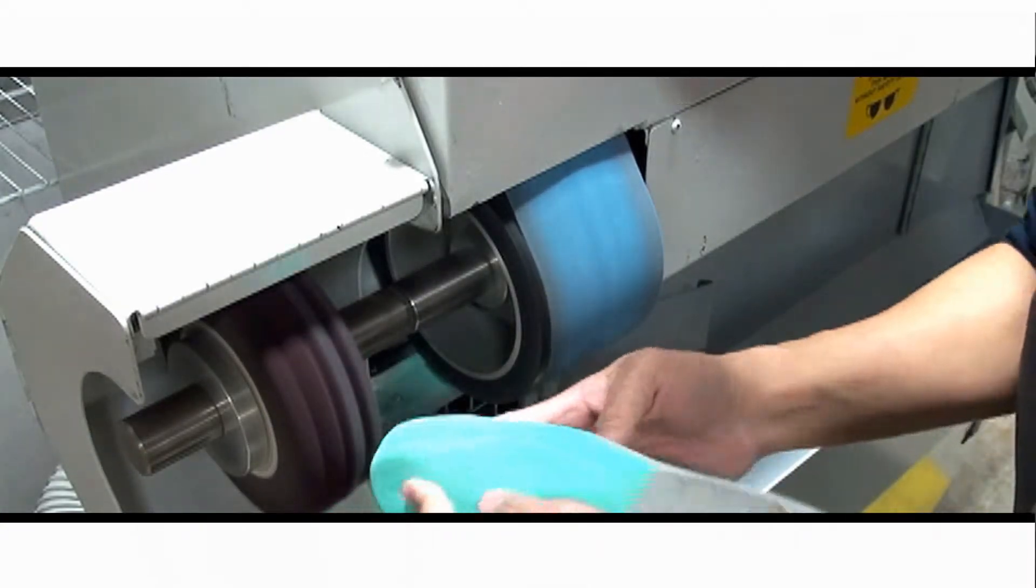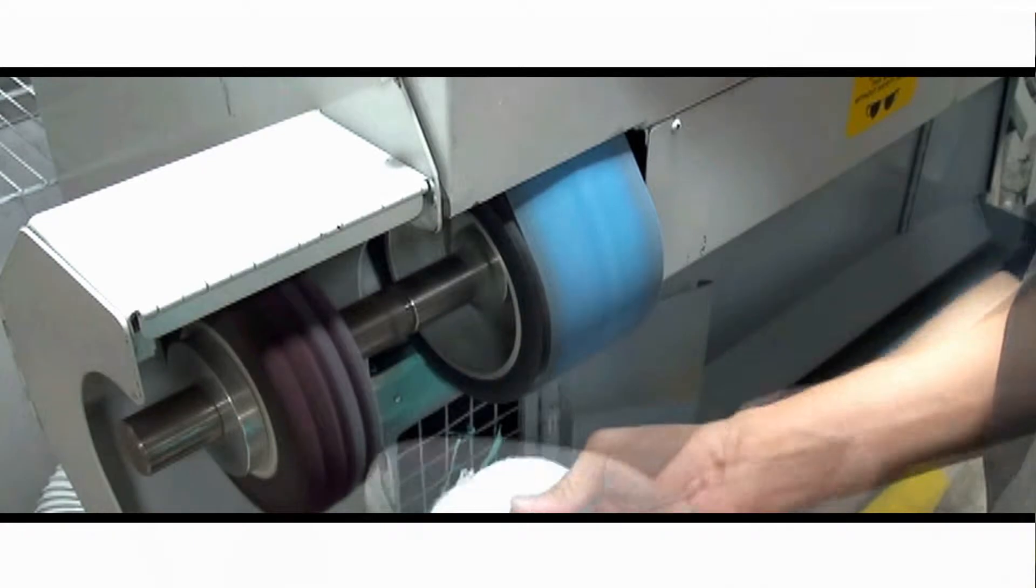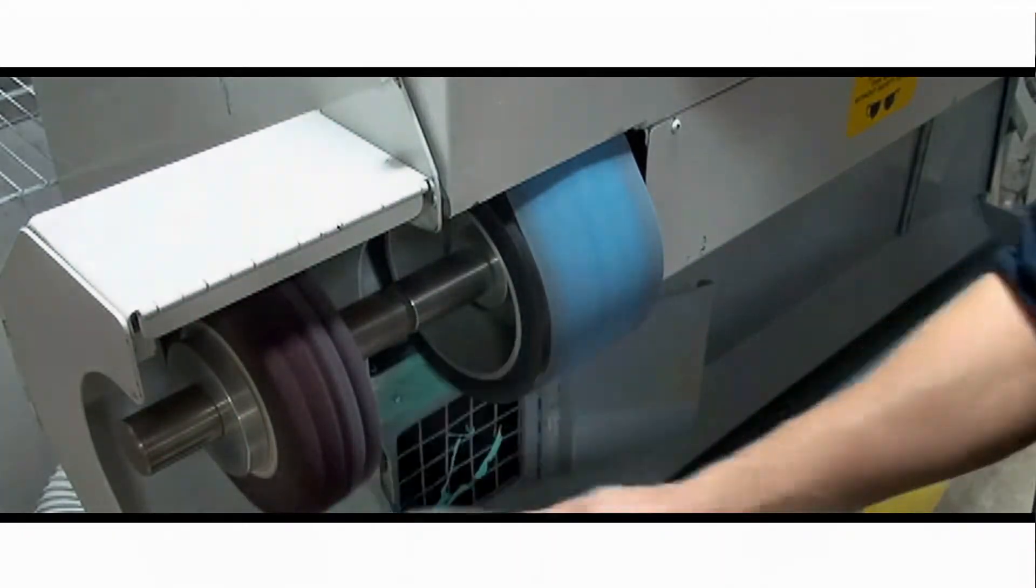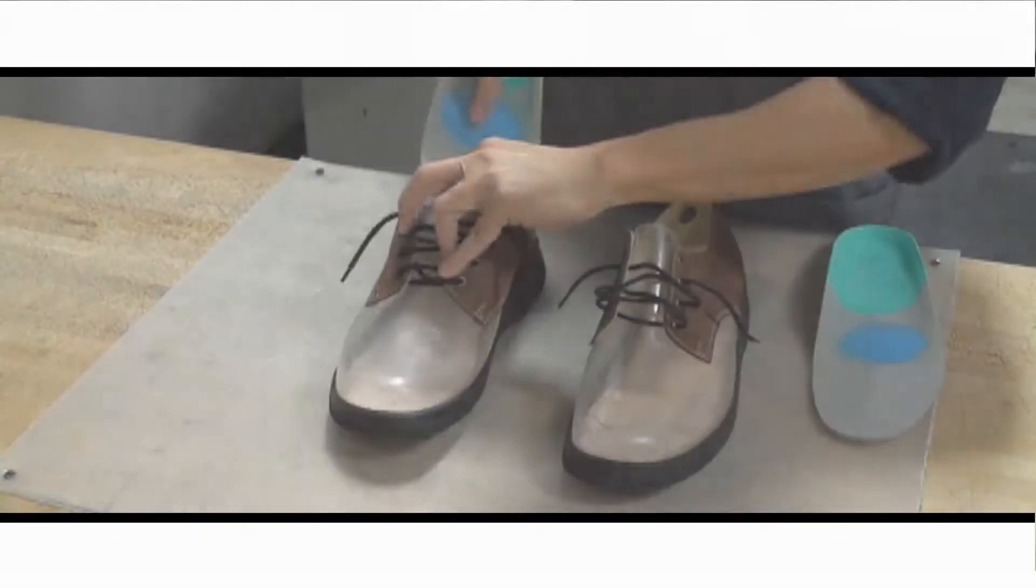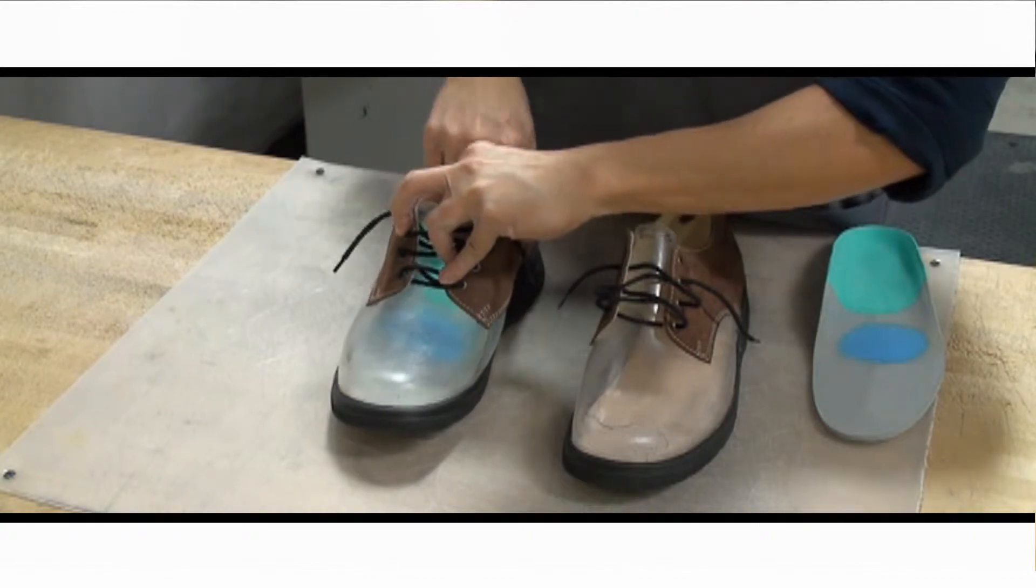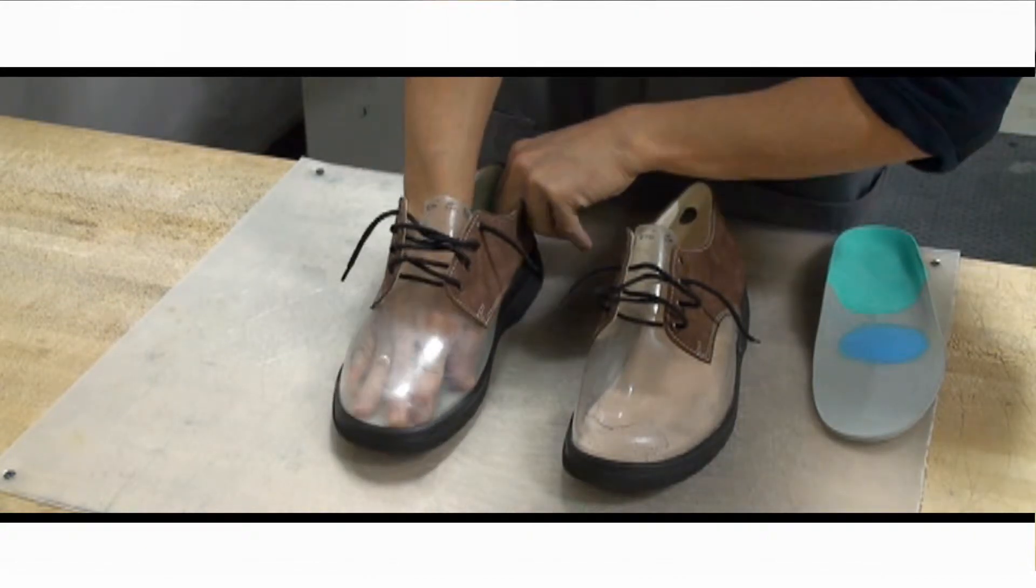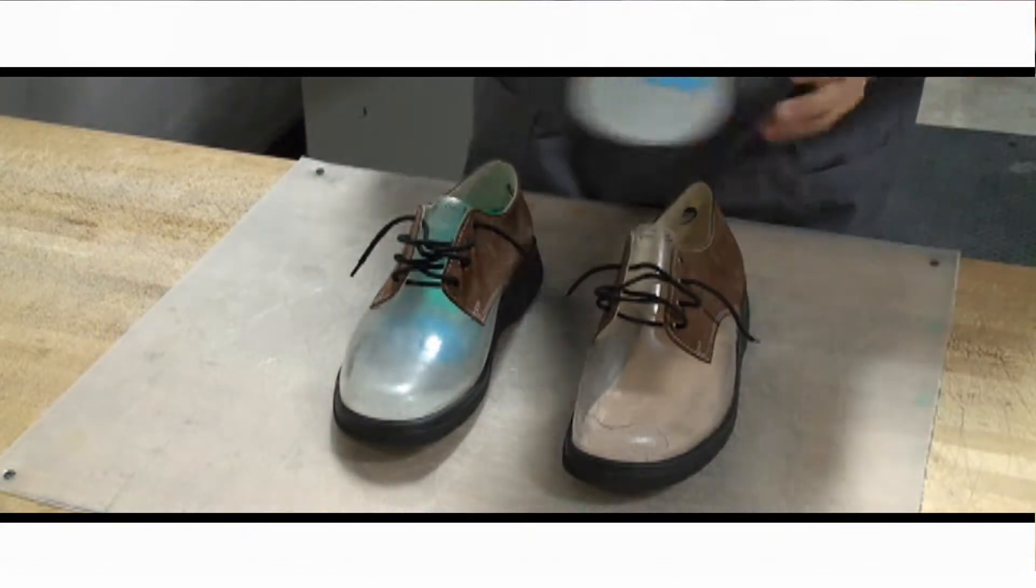Our certified and experienced staff of professional pedorthists and lab technicians work proficiently with Paramed Technology to provide your patients with customized and reproducible devices for the best possible results.